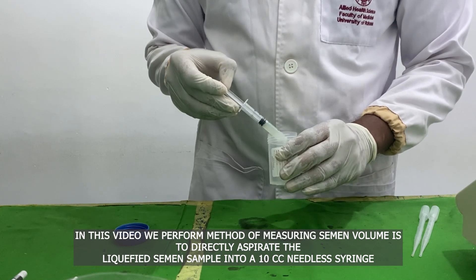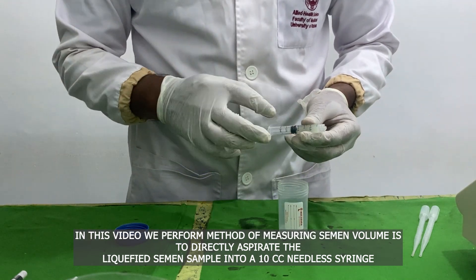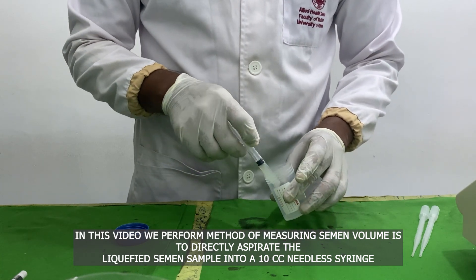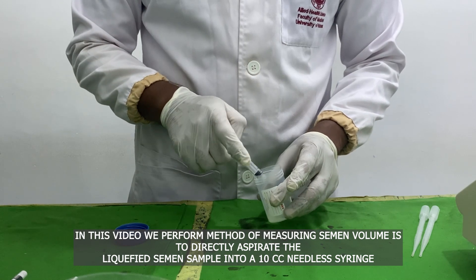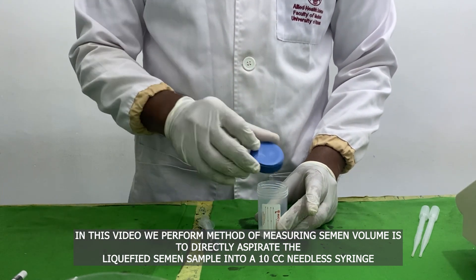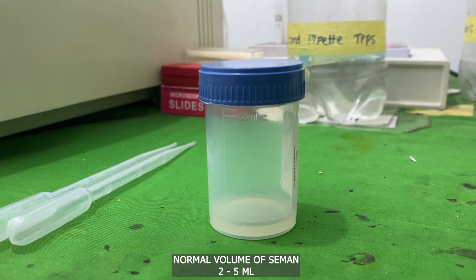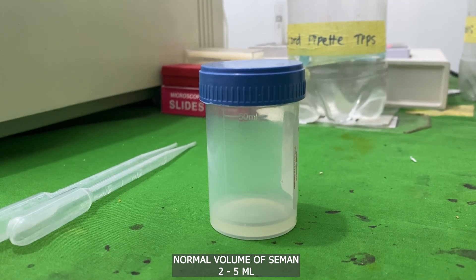An alternative method of measuring semen volume is to directly aspirate the liquefied semen sample into a 10 cc needleless syringe. After positioning the container in a slanting position for a couple of minutes prior to aspiration, make sure to aspirate completely till the last drop, while taking extreme care not to aspirate any air bubbles. Approximately 2 to 5 milliliters is considered the normal volume of semen per ejaculation.